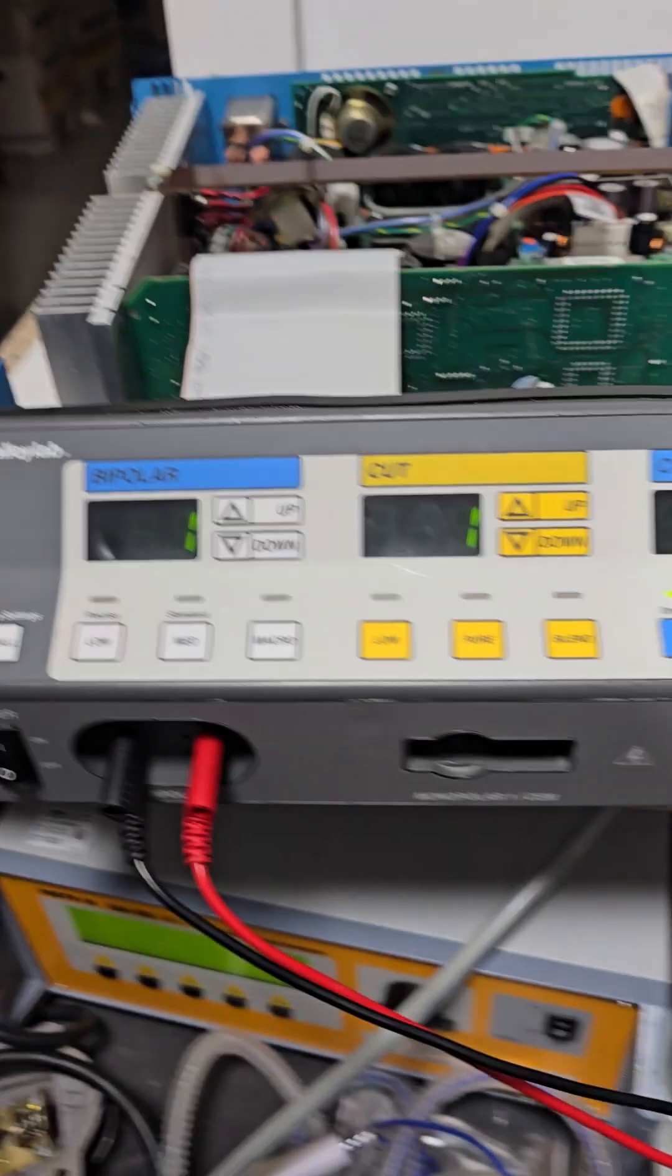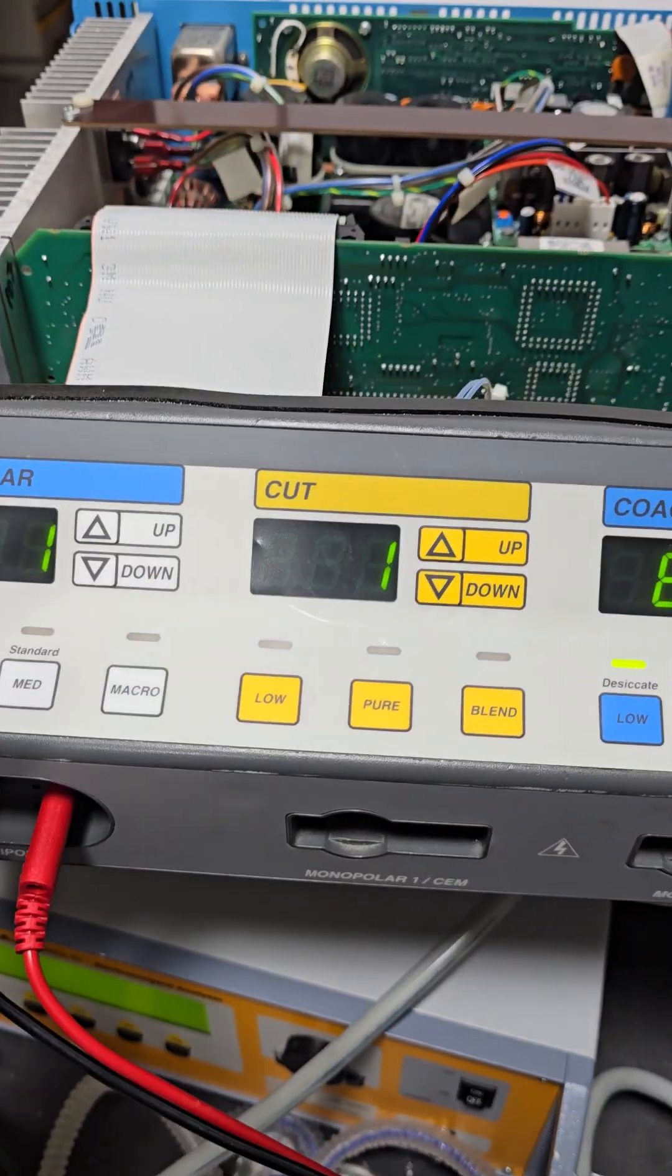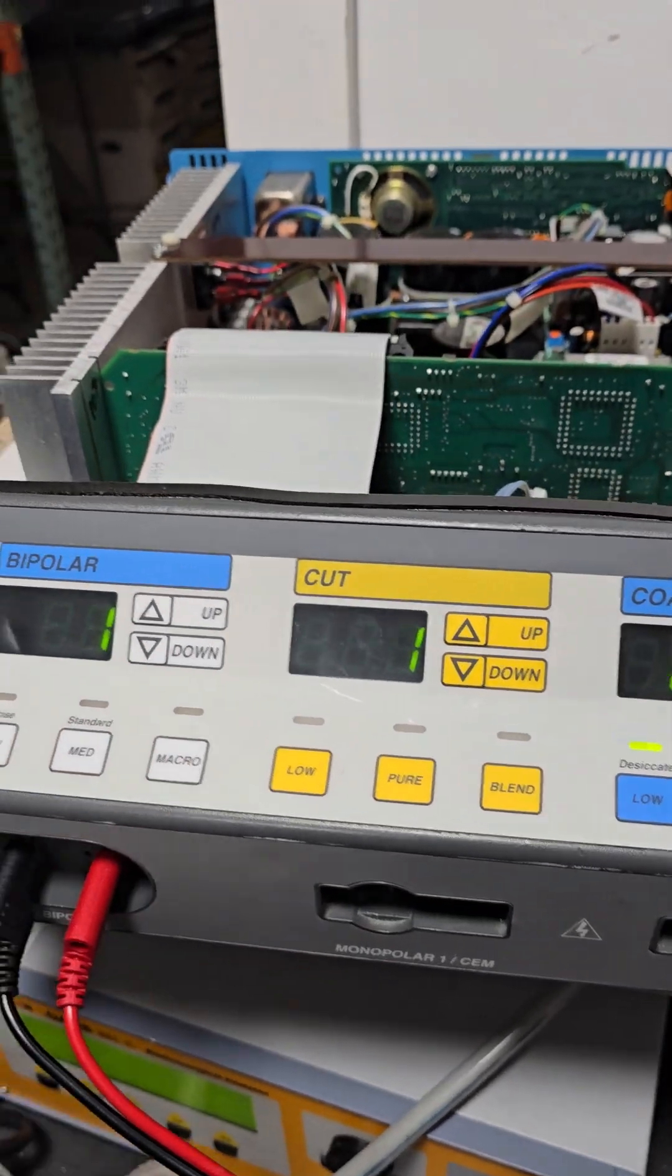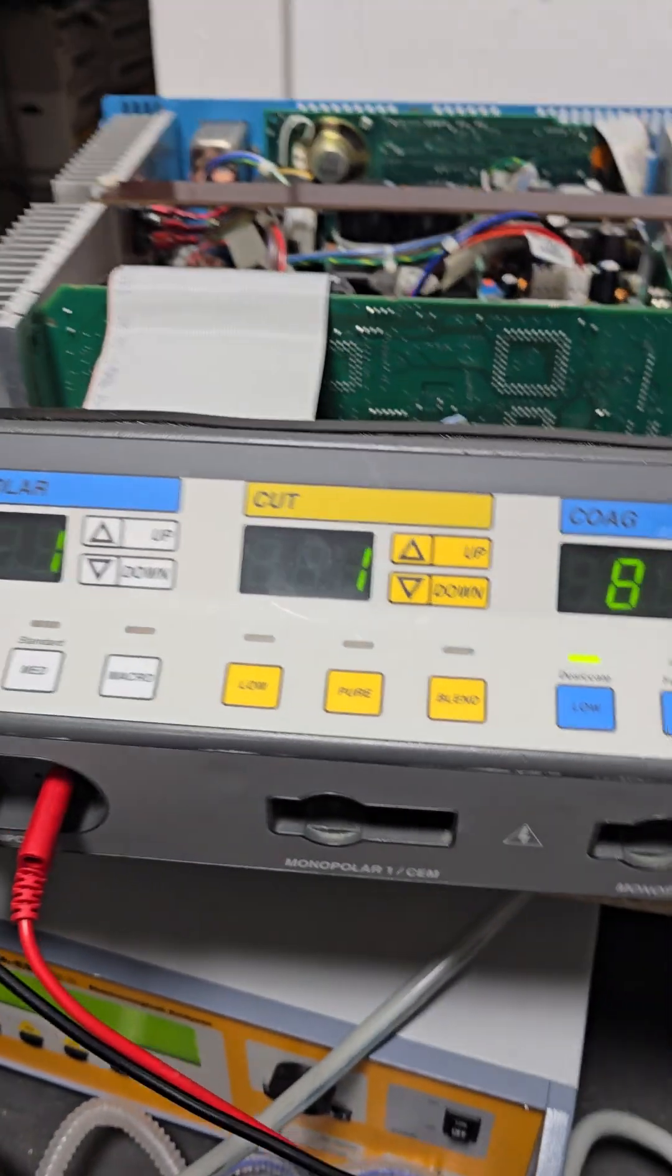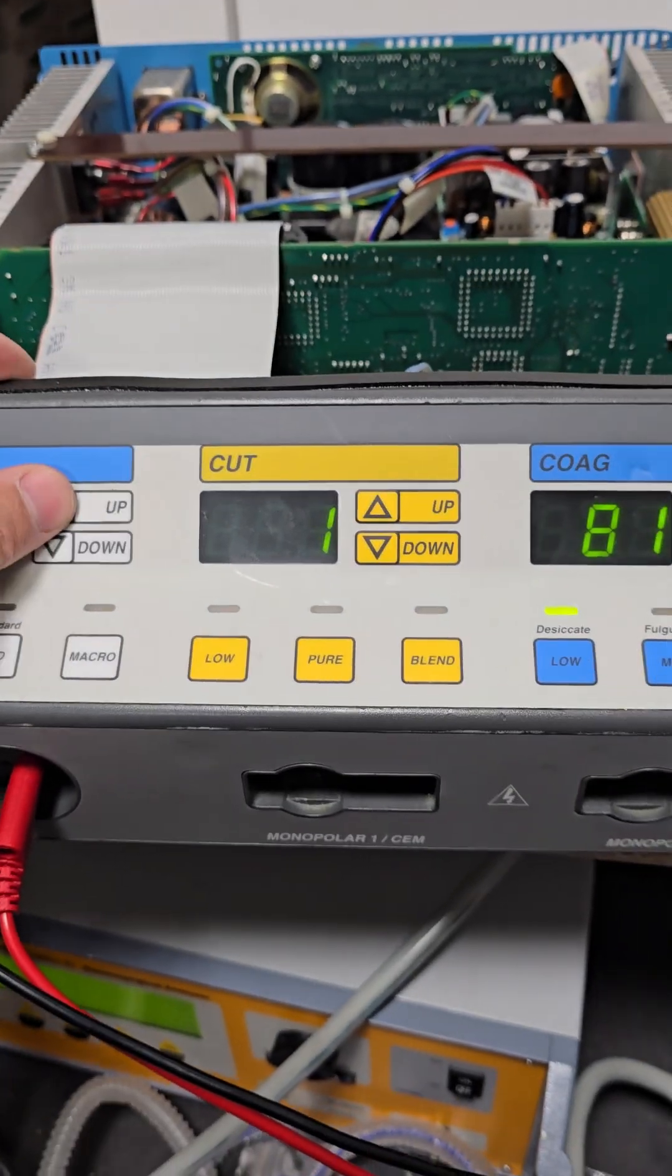First thing you should see is this window. This is test one, it's not really a test, call it page one of the calibration. And then this number is just a software configuration, it really doesn't matter to us at all.